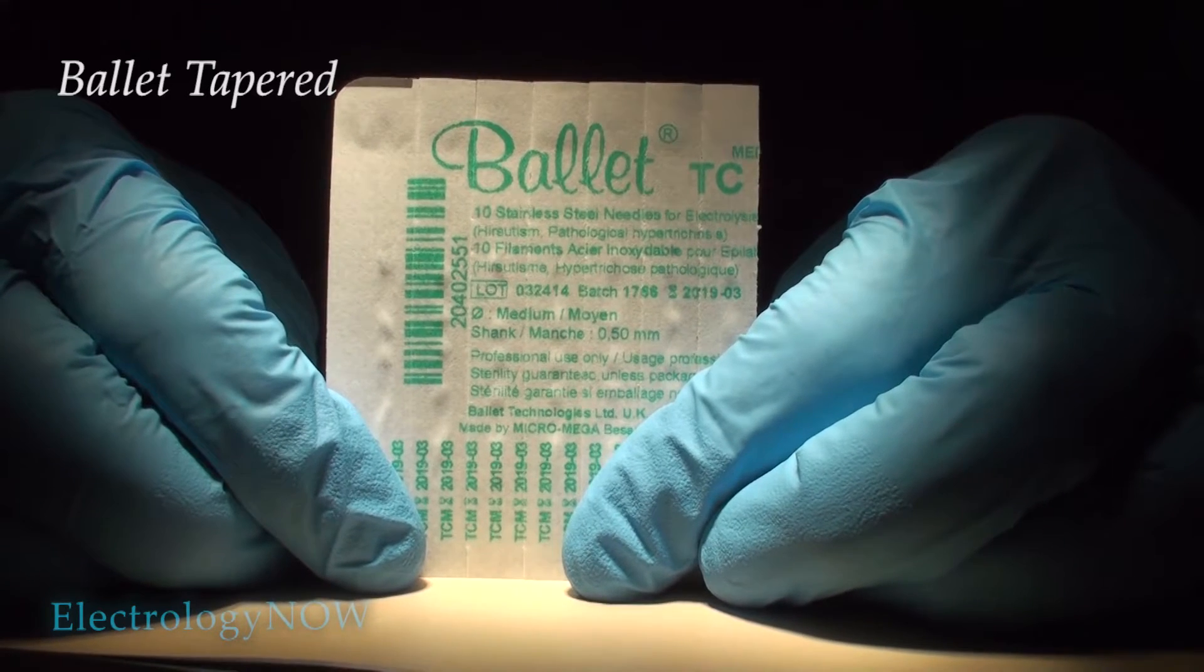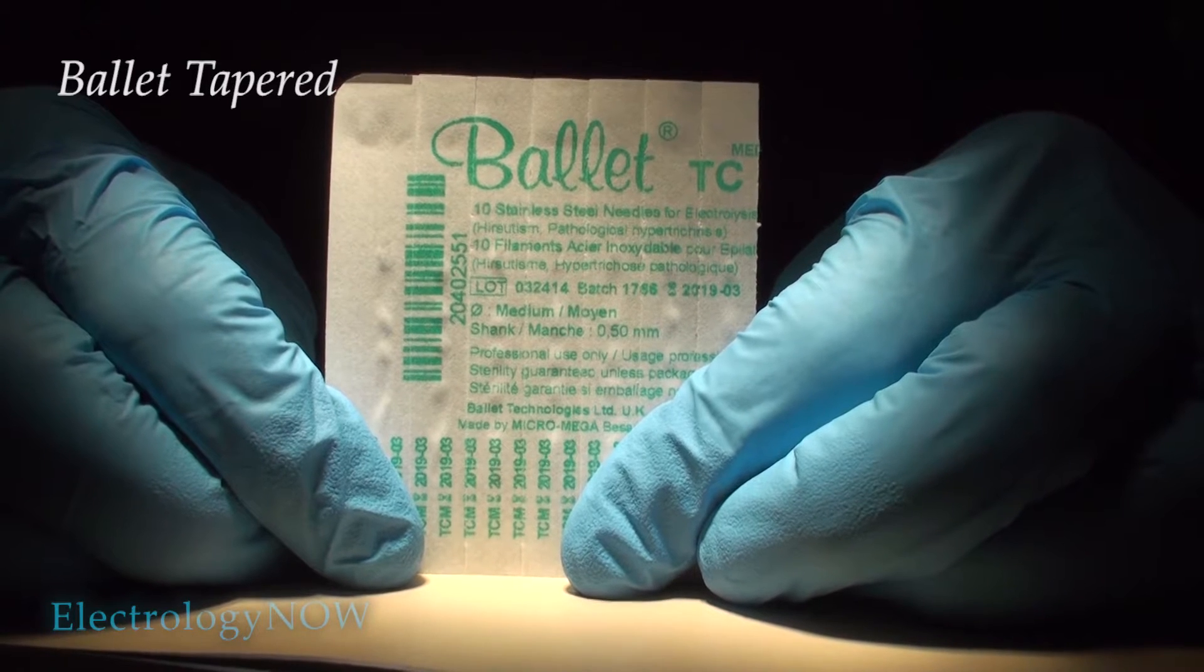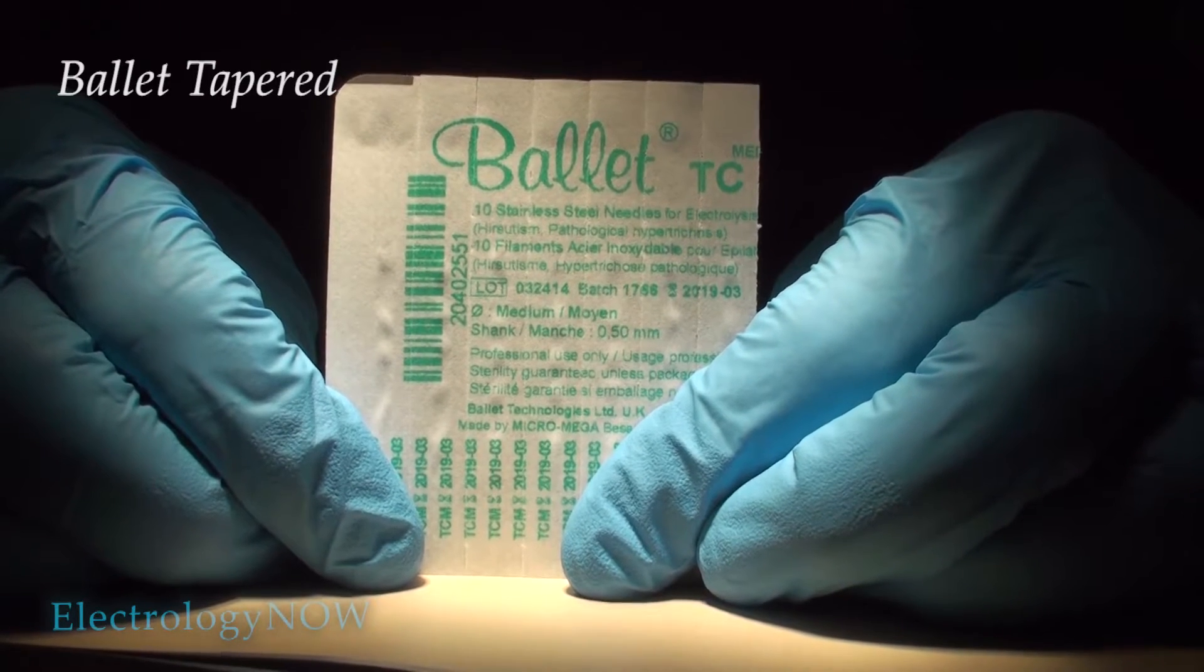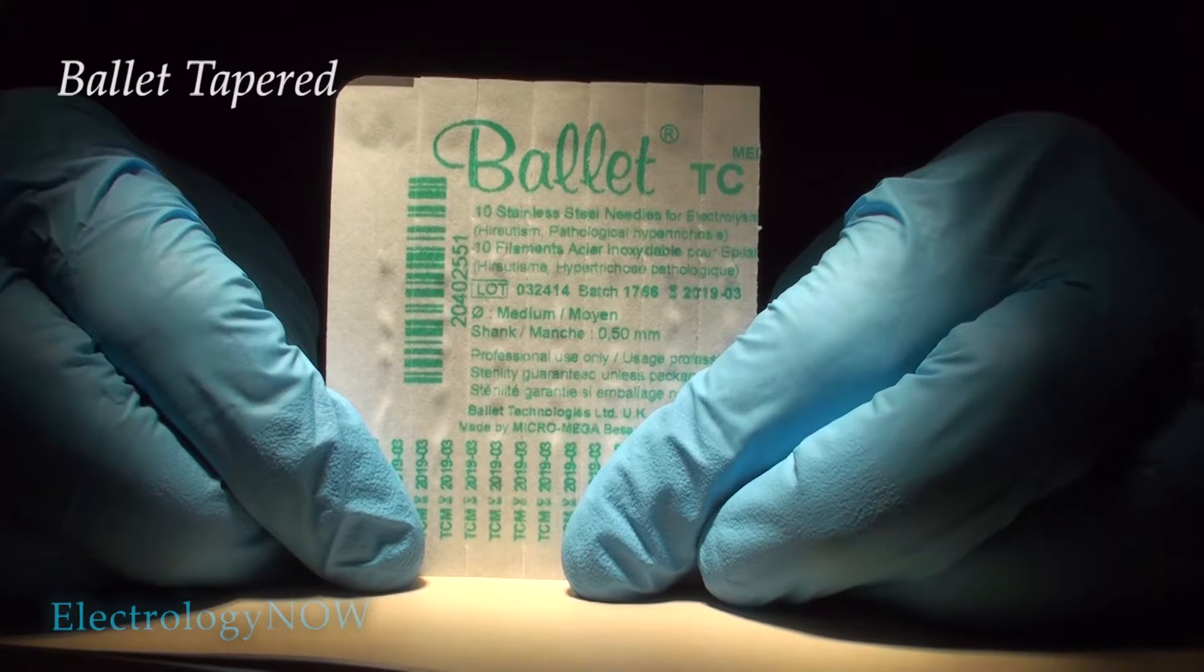These are the Ballet Tapered Needles, my favorites. These needles work very well for standard manual blend electrolysis.